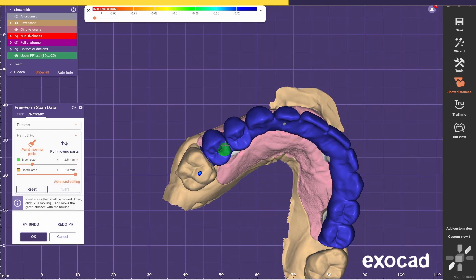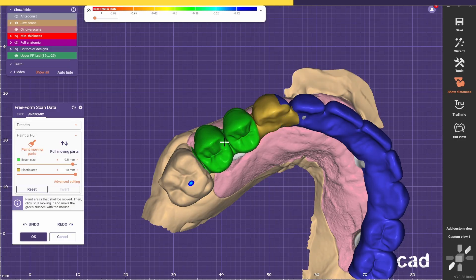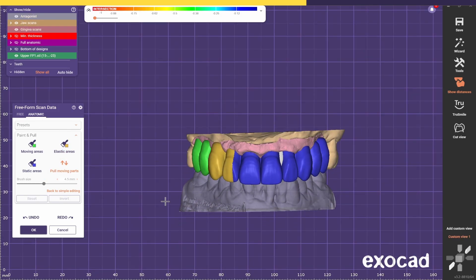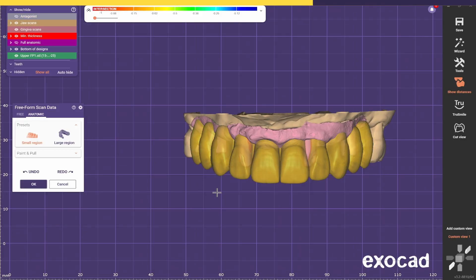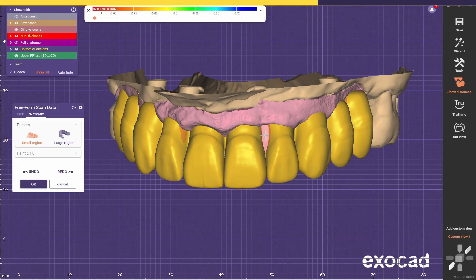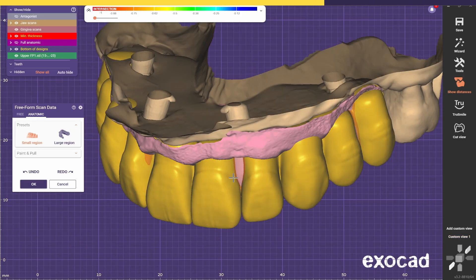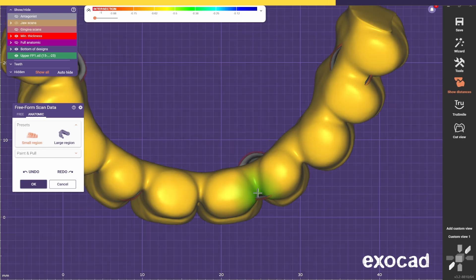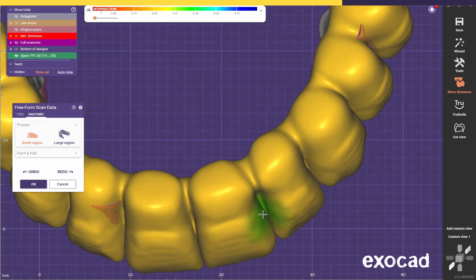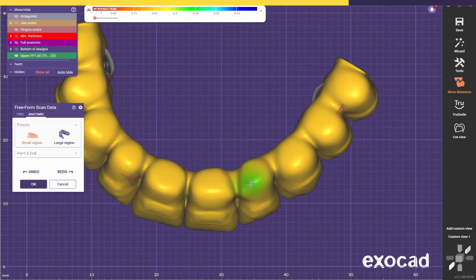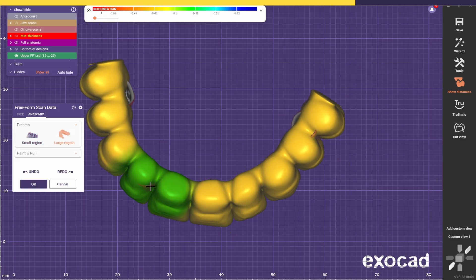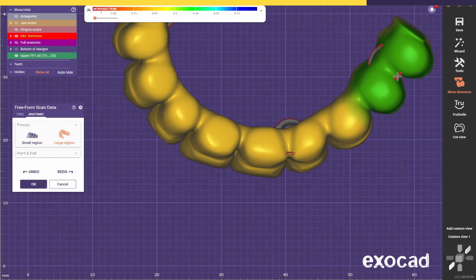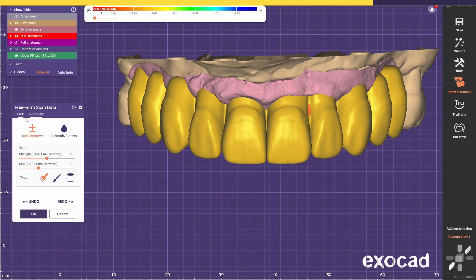Go to Paint Moving Parts, select Reset, and now paint just these premolars. I think I'm happy with this. Now go back to the other tools and I just want to make sure that I bring this part out, because the abutment is already trespassing the embrasure of these teeth. So I'll just use these tools to bring out the embrasure without distorting too much, and probably use the bigger one as well. I think for now it's manageable and we're going to sort the rest after it merges to the abutments.